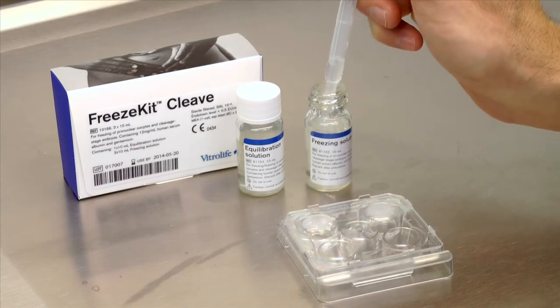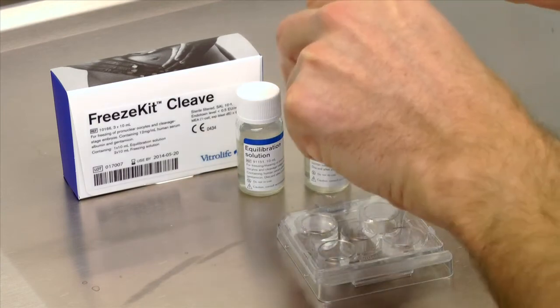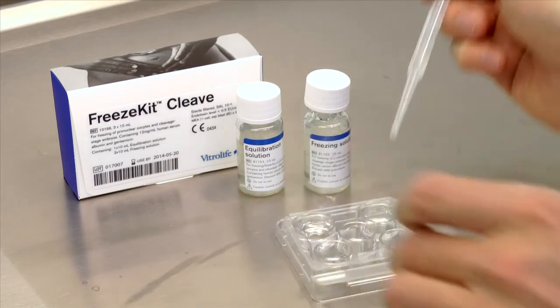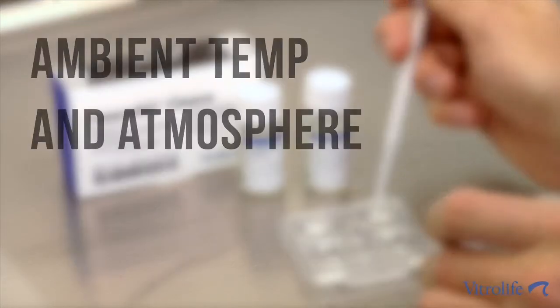Using freeze kit cleave, prepare the dishes with 0.5 to 1 ml of equilibration solution and freezing solution at ambient temperature and atmosphere.